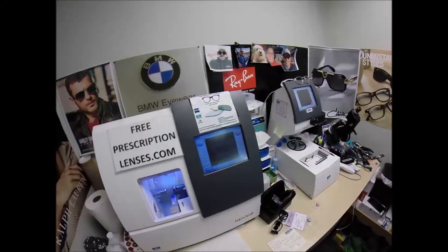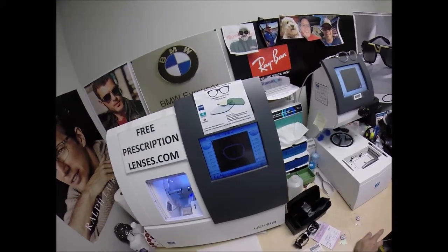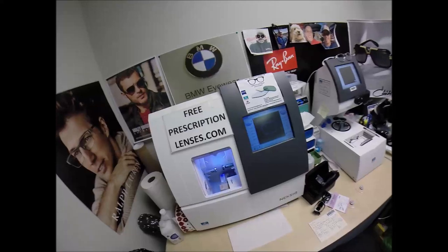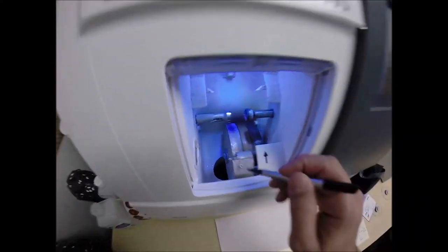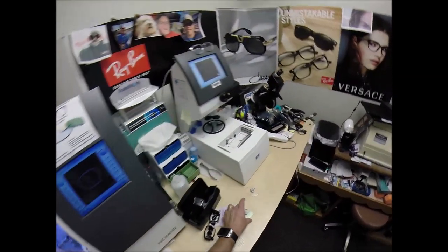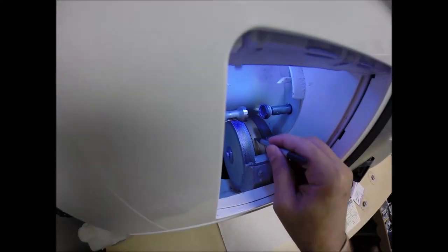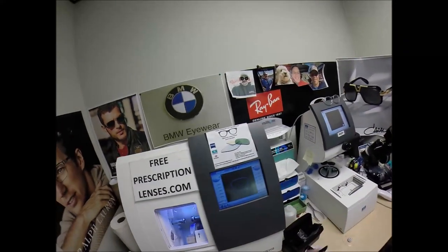Now this is the edger. This costs $30,000, this costs $10,000, and this was free — they threw that in. Combined it's $40,000 and it weighs 200 pounds. The actual cutting wheel is a diamond-crusted wheel that's going to grind away your lens material from a larger size down to the frame size. This wheel in the center has a little bevel — that's what puts the v-shaped bevel on the lens so it stays inside the bevel of the frame.